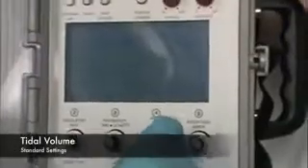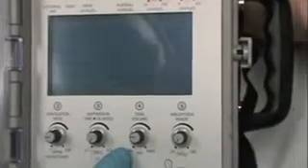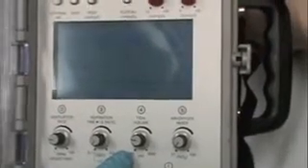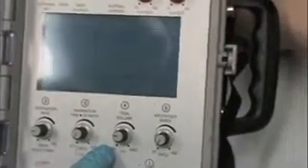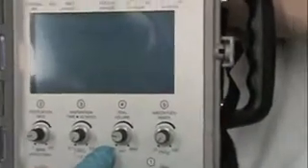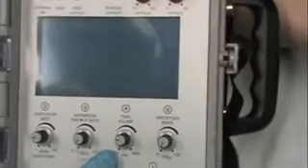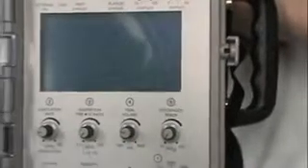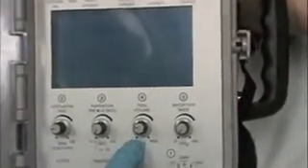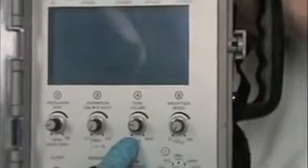So tidal volume. In general, you should set a tidal volume of about 6 cc's per kilogram of the patient's ideal body weight. So if you're transporting a bariatric patient and they weigh 700 pounds, you should not take that kilograms of weight and multiply times 6. You should take what their ideal body weight should be and realize that a patient that obese, you may have to adjust a little bit more volume than what their ideal is to get their chest wall to really move. But the standard size adult, 6 cc's per kilogram of their ideal body weight is how we set their tidal volume.